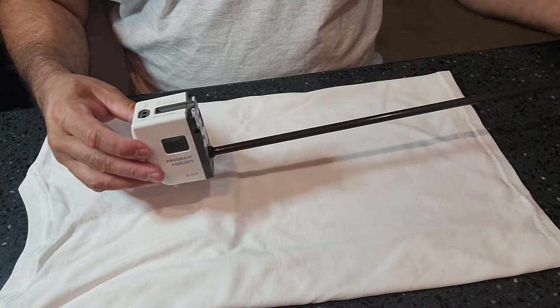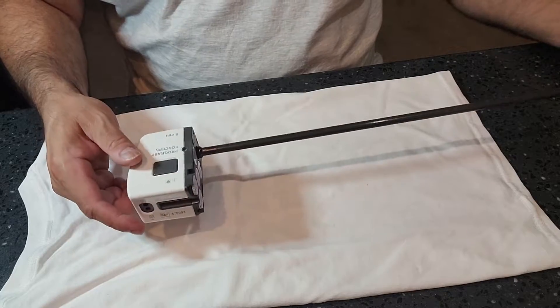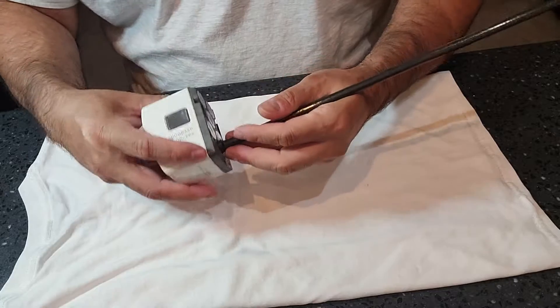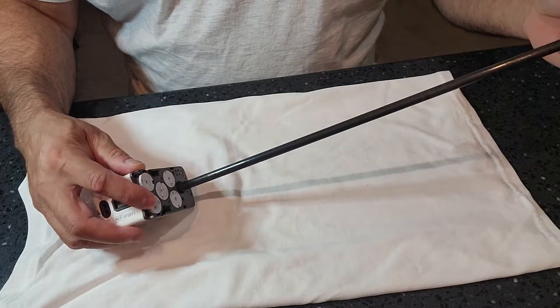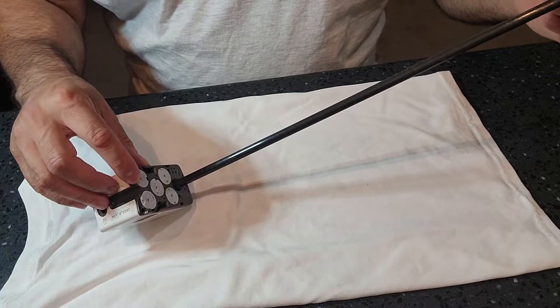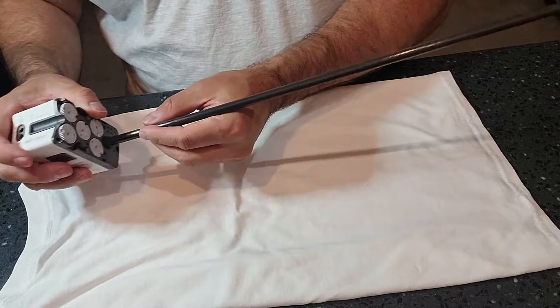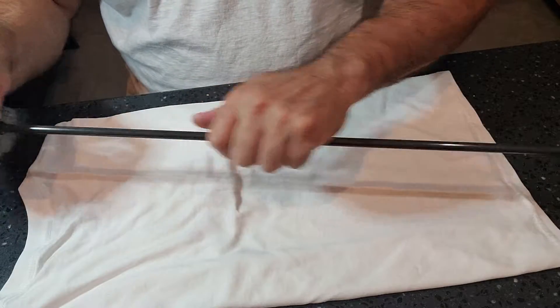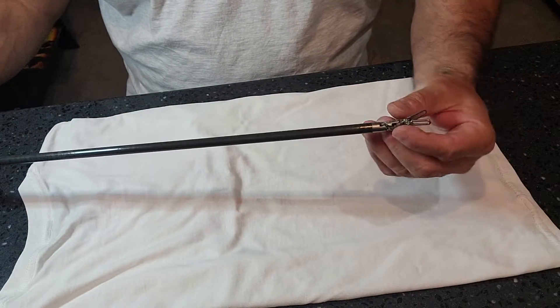When it comes down to decon, you want to do your original inspection — make sure there are no cracks or separations in the box and the seals. You want to make sure that the wheels are intact and not broken off. Observe the shaft to make sure there are no nicks. You have gloves on, but you can pass down the shaft and feel if there's a nick.